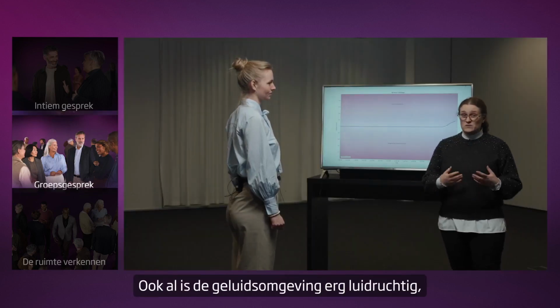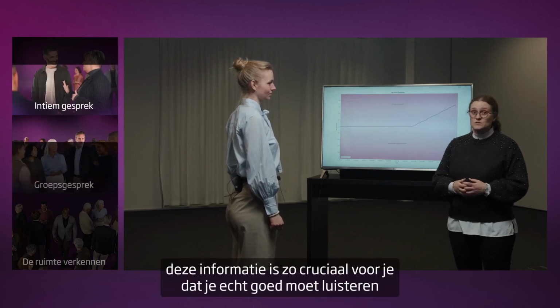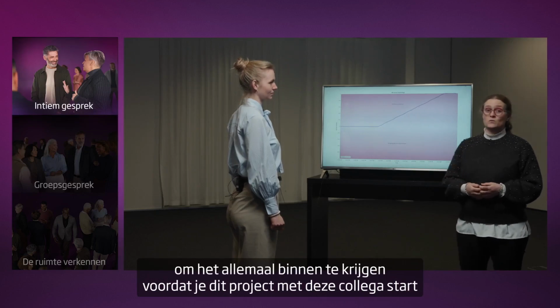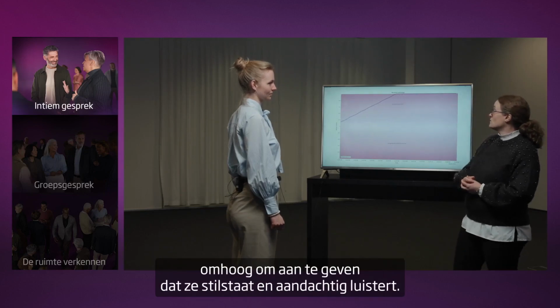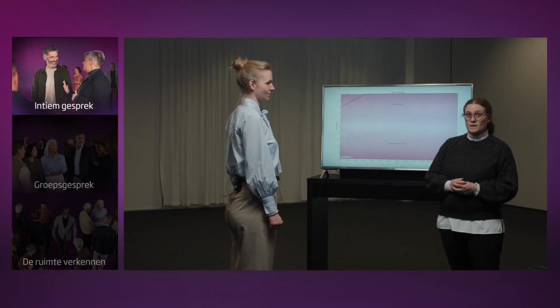And even though the sound environment is really noisy, this information is so crucial for you that you need to really listen carefully to get it all before you have to start up this project with your colleague and a lot of other stakeholders. As you can see on the screen, Pernille is now standing still and the curve is moving up to indicate that she's standing still and listening carefully.